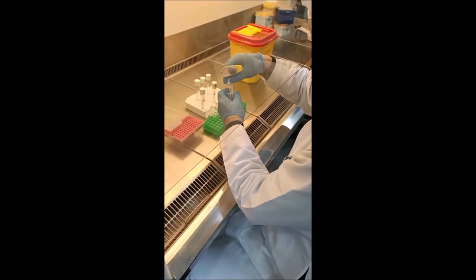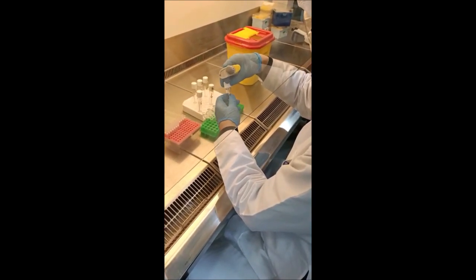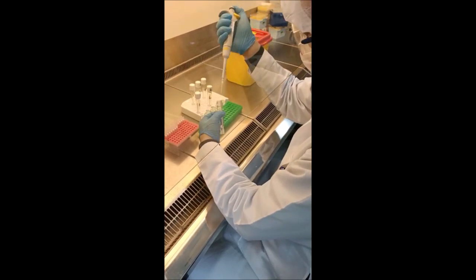The second step of the procedure is the extraction of RNA from clinical samples.